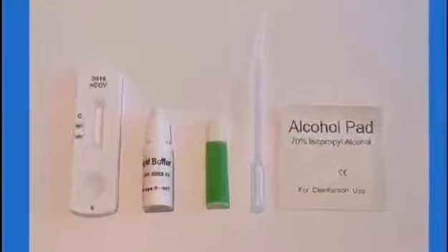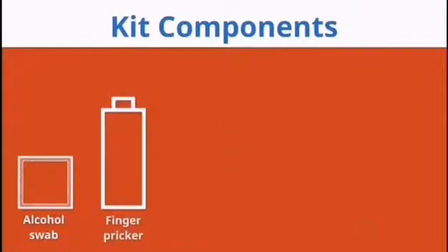The test kit consists of: 1. Alcohol swab to disinfect the finger the blood is to be drawn from. 2. Finger pricker to puncture skin and draw the blood.